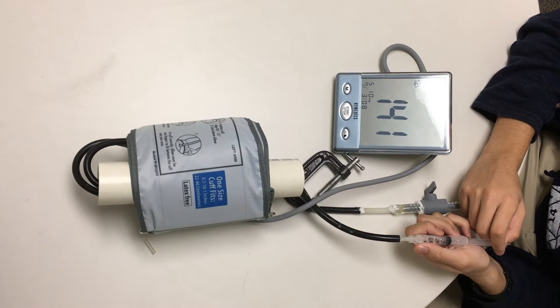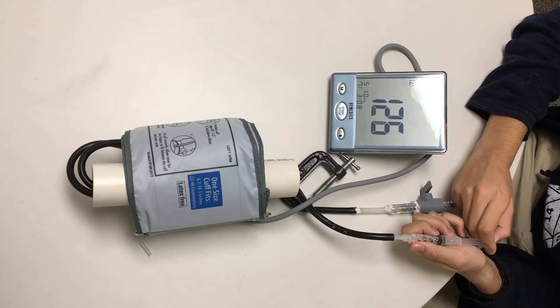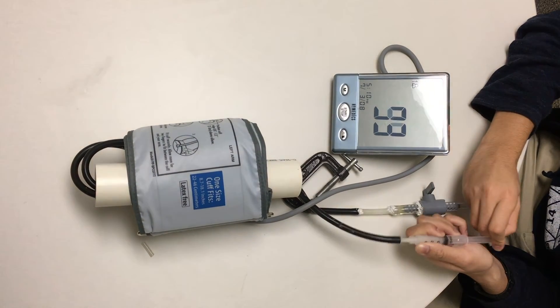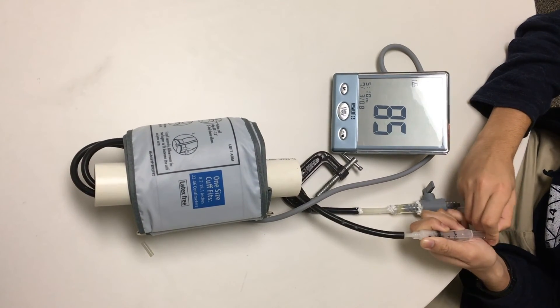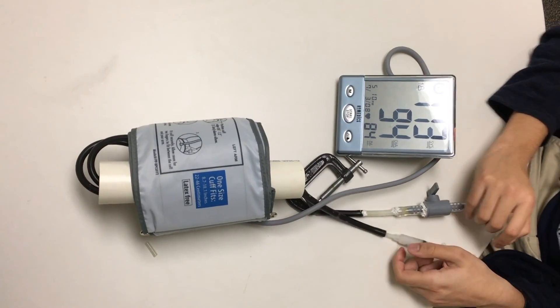At 110 we slow down to small pumps again, and at 130 we stop entirely. While the pressure lowers, we do the same thing in reverse: at 130 we start doing small pumps, at 110 we pump faster, at 70 small pumps again. Then you close the tube.